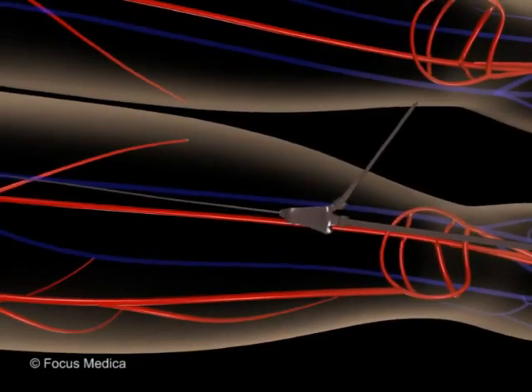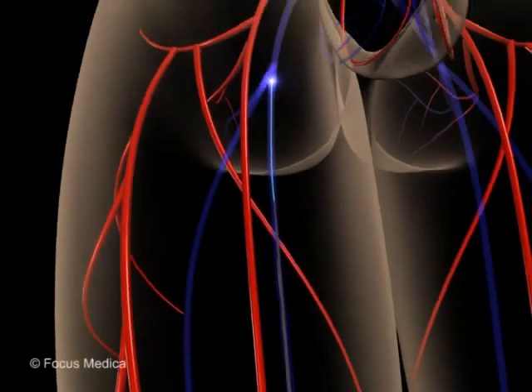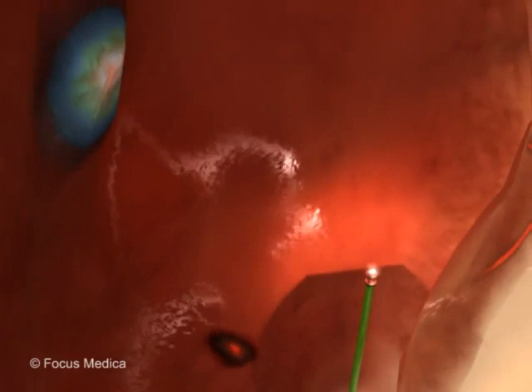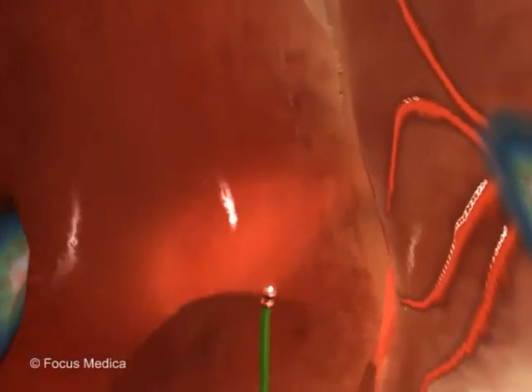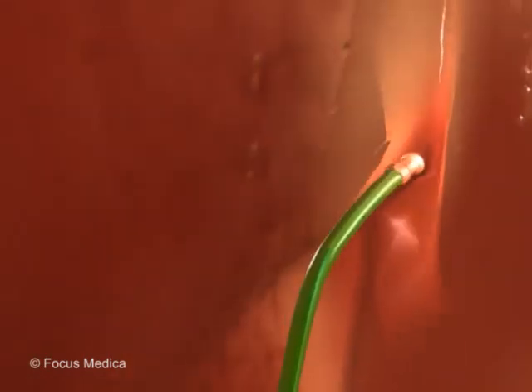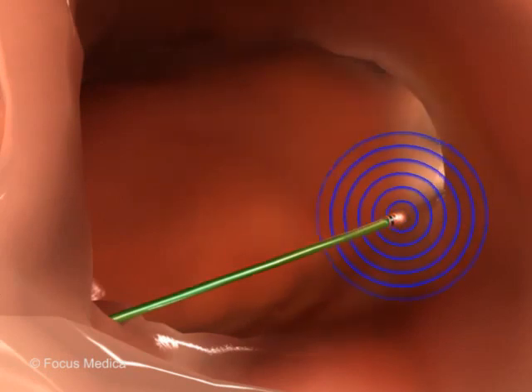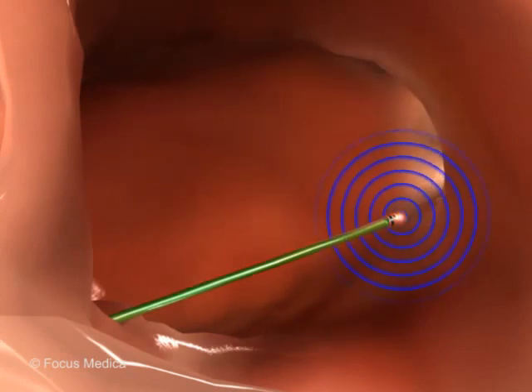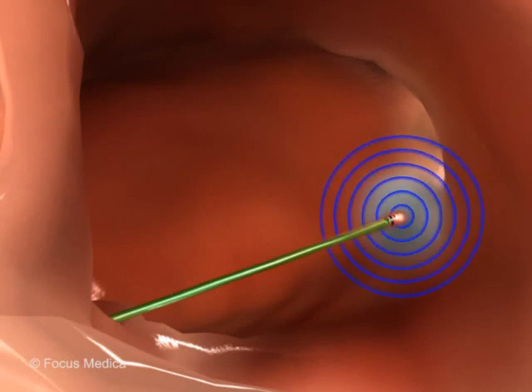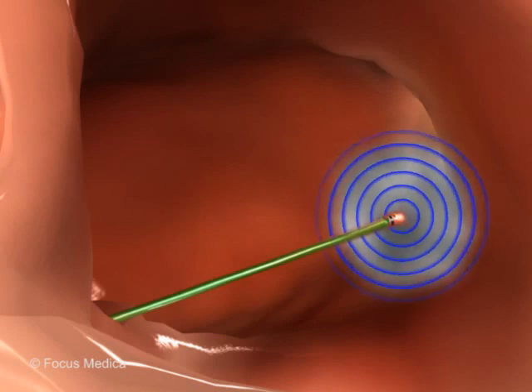In this procedure, a special catheter is inserted into the large vein in the groin and threaded into the heart. The catheter is then passed through the atrial septum and into the left atrium, to the area surrounding the pulmonary veins. The radiofrequency energy emitted from the electrode at the tip of the catheter creates lesions around the veins that generate abnormal electrical impulses.